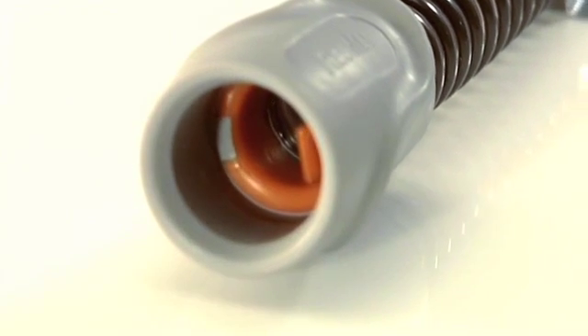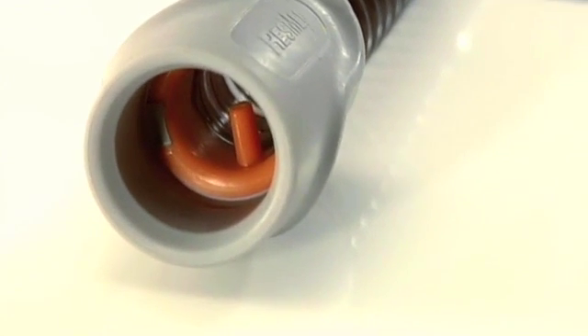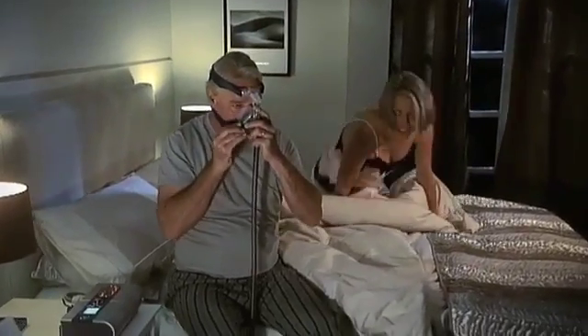With the climate line tube we actually measure the air temperature at the mask. You'll see a little wing, which we've called the thermo wing, sitting in the air stream right up near the mask. And that's measuring the temperature. So for the first time you've got direct control over the temperature of the air coming in up at the mask.